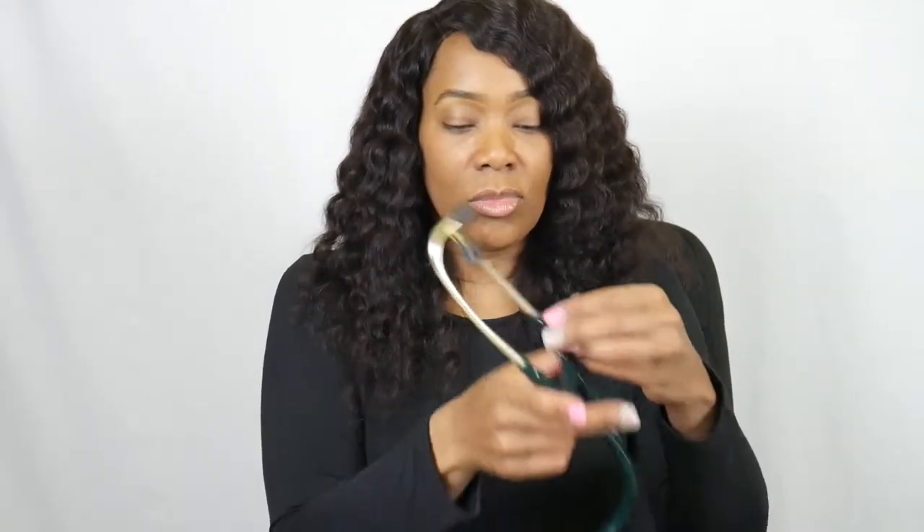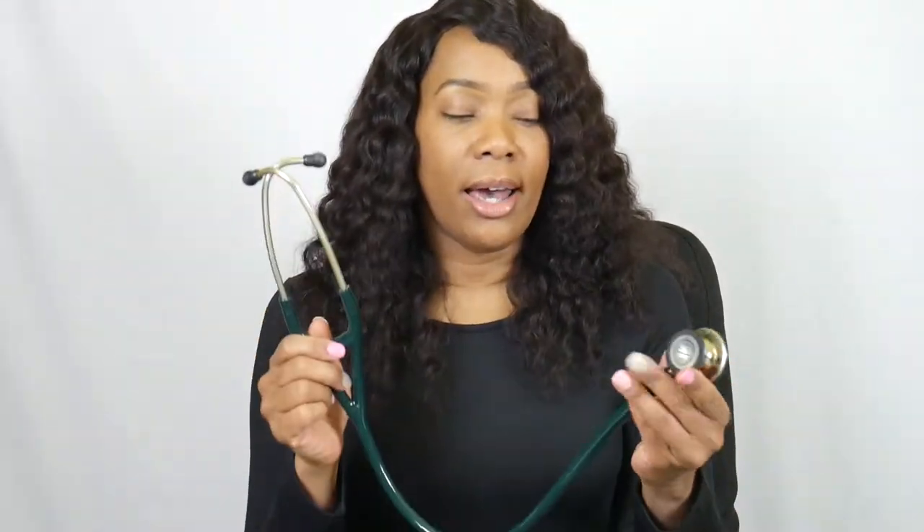The Cardiology 4 is 27 inches long and has a larger bell than the Classic 3 — approximately 60% deeper and 40% larger than the Classic 3 stethoscope. That alone may help make your purchasing decision. The high-frequency acoustics are pretty good, it's easy to clean with 70% alcohol, and it has soft ear tips that snap in easily.